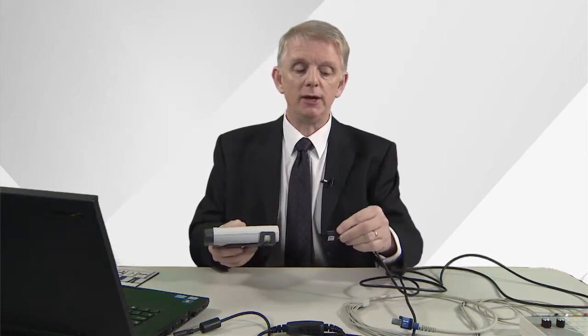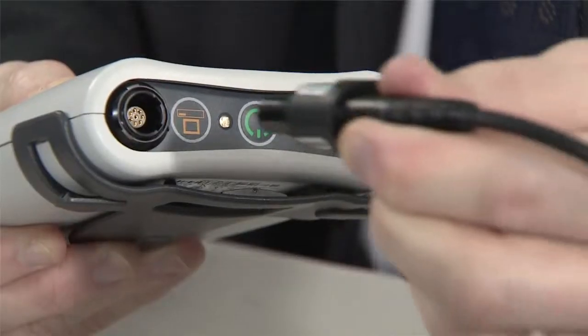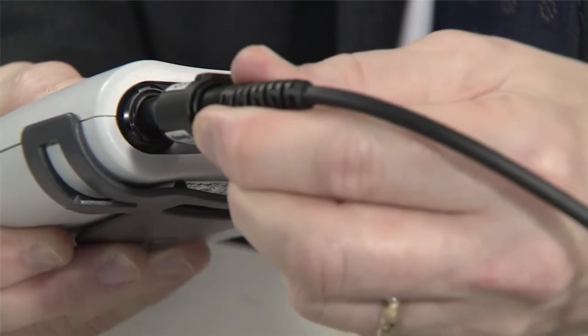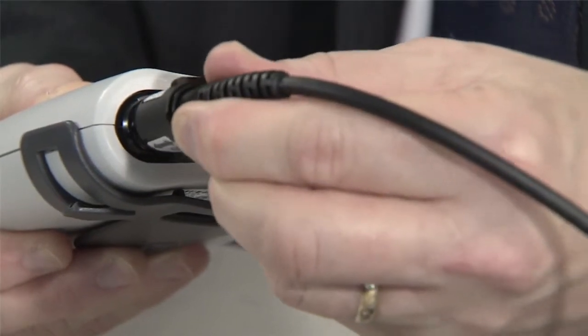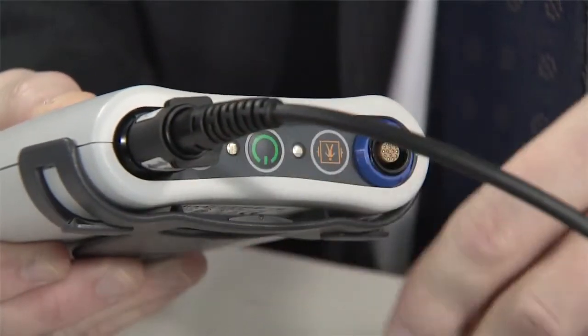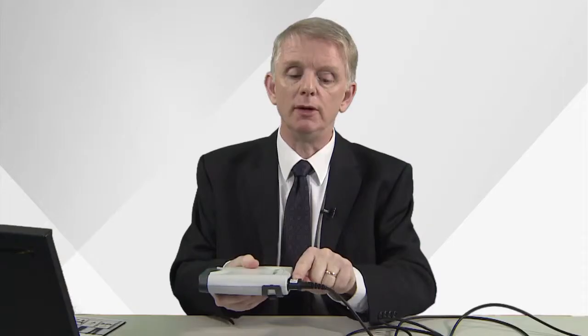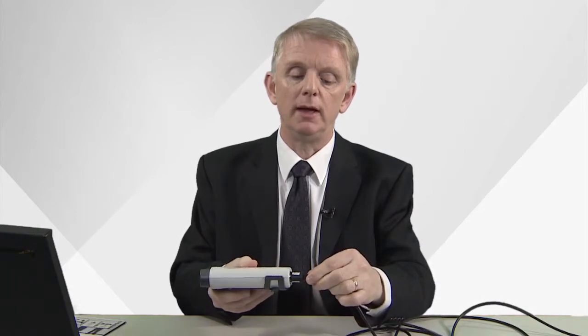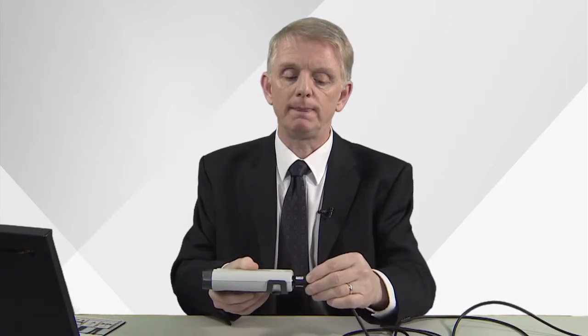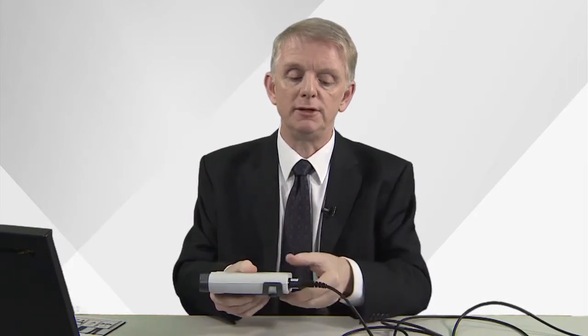Once you've prepared your patient, taking an ECG is really simple. To do this, connect the black USB cable to the black port on the top of the ECG. Now this can be done if the black arrow is on the top of the cable and the collar on the inside of the cable points inwards.